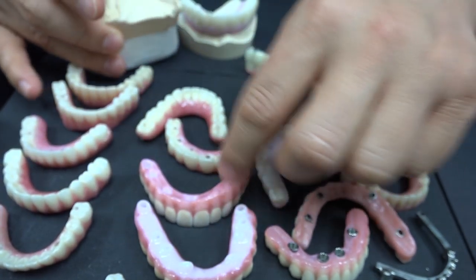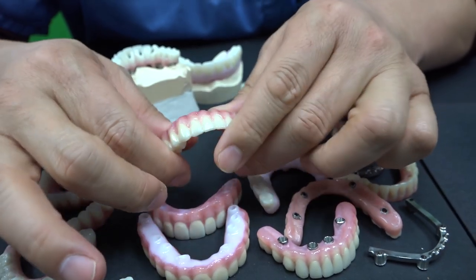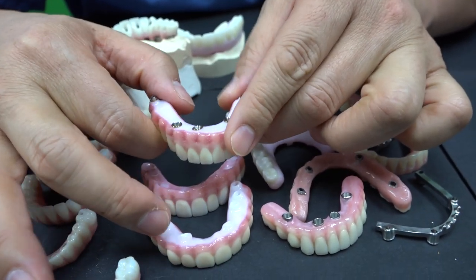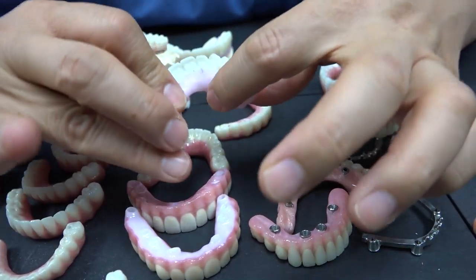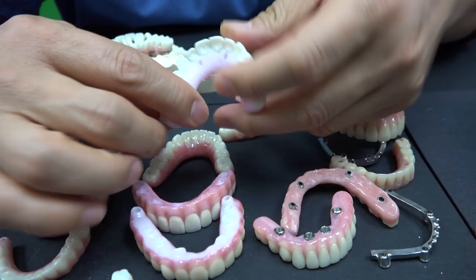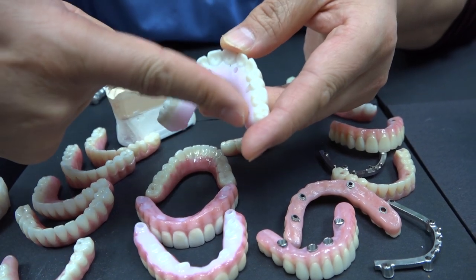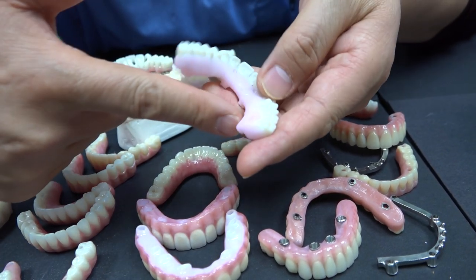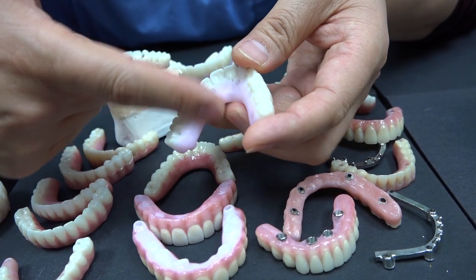Think about it, compared to zirconia — we have to make it thick here. You know why? This is ceramic; zirconia will break if not done correctly. This one really needs strength and bulkiness on the lingual side. The problem is the tongue — when they have bother, I mean bothering on the lingual side because of the implant. People don't like it, and maybe pronunciation problems.